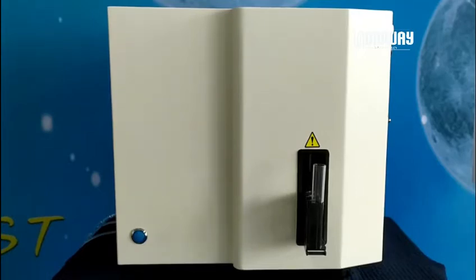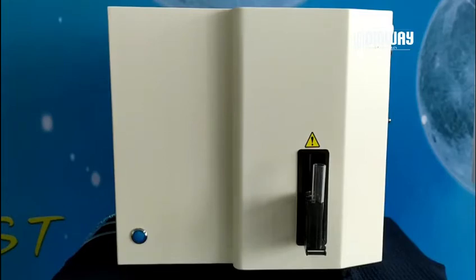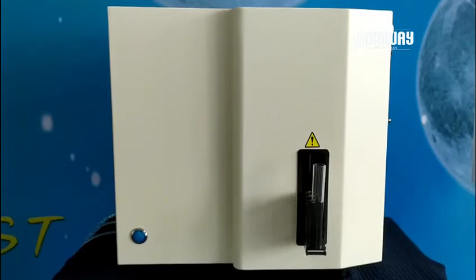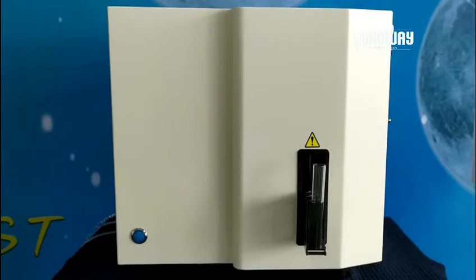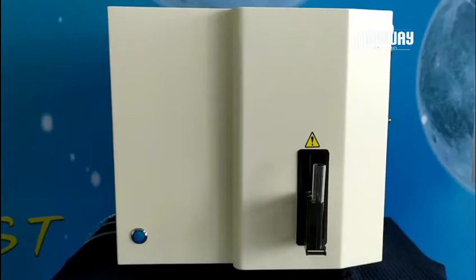On the aspect of appearance, the dimension of this machine is quite compact and its weight is not too large as well. The slot on the front side is a track for tube rack entering.